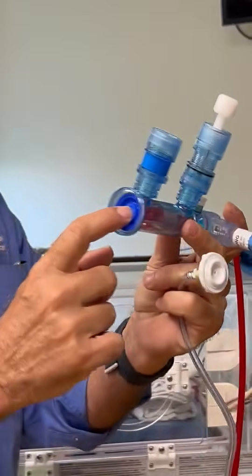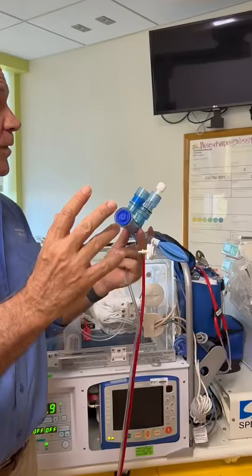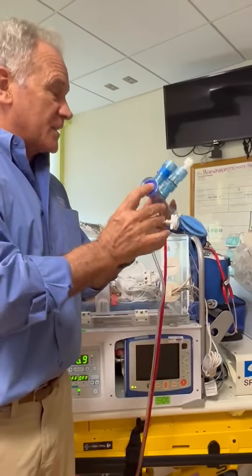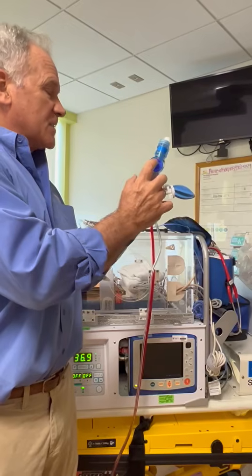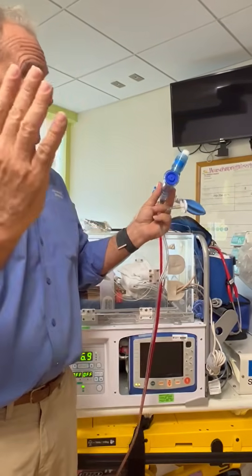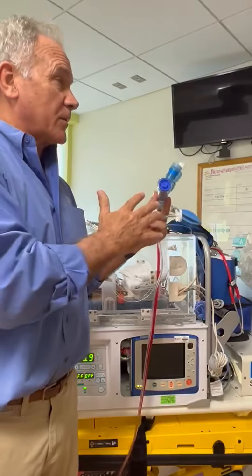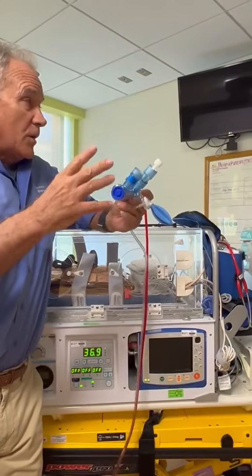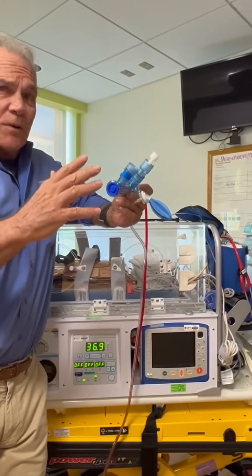So basically the way the flow interrupter works, it delivers a breath, it stops, and then the spring lets go. So, you know, inspiratory time and then exhalation. So that's why we typically slow down the rate. And we'll talk in a little more detail later on about what y'all do, but I think y'all go based on disease processes here.